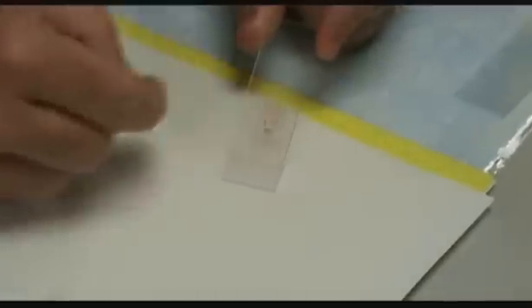The boxes of slides that we have call themselves pre-cleaned slides, but they are not. They need to be very carefully cleaned with alcohol. I tried to clean these with these finger wipes and it didn't work out that well. But you get the general appearance of what the thin smear should look like. You want to have a single cell thickness layer at the feathered edge of the smear. Now that's the thin smear.